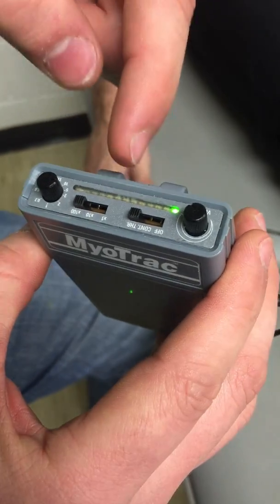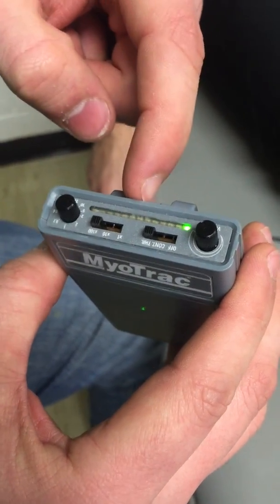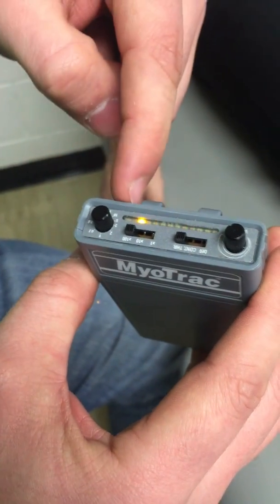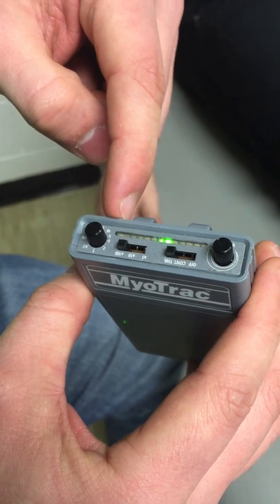Both these numbers together will equal the midline of this light bar. The baseline will be half of that, and all the way to the top will be double that midline.